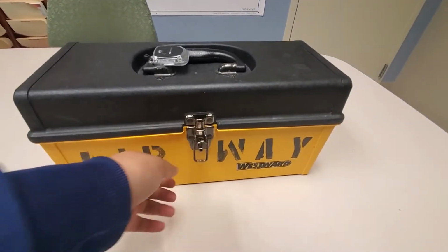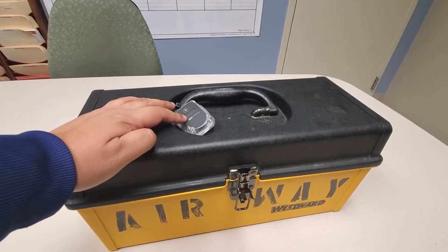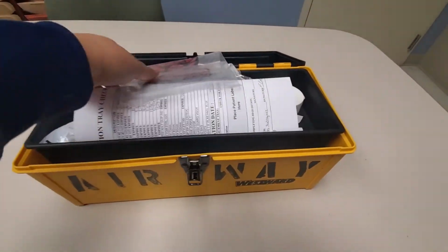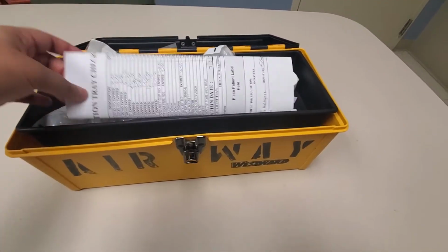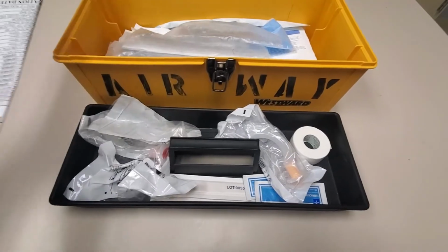So there's trackers on all the boxes. So if you need to find one, you can go through the tracking system to find that. But there's always going to be a bunch in CS. Once you open your box, you're going to have a few things. There's this little drawer of things that are in the top, but we'll put this to the side.